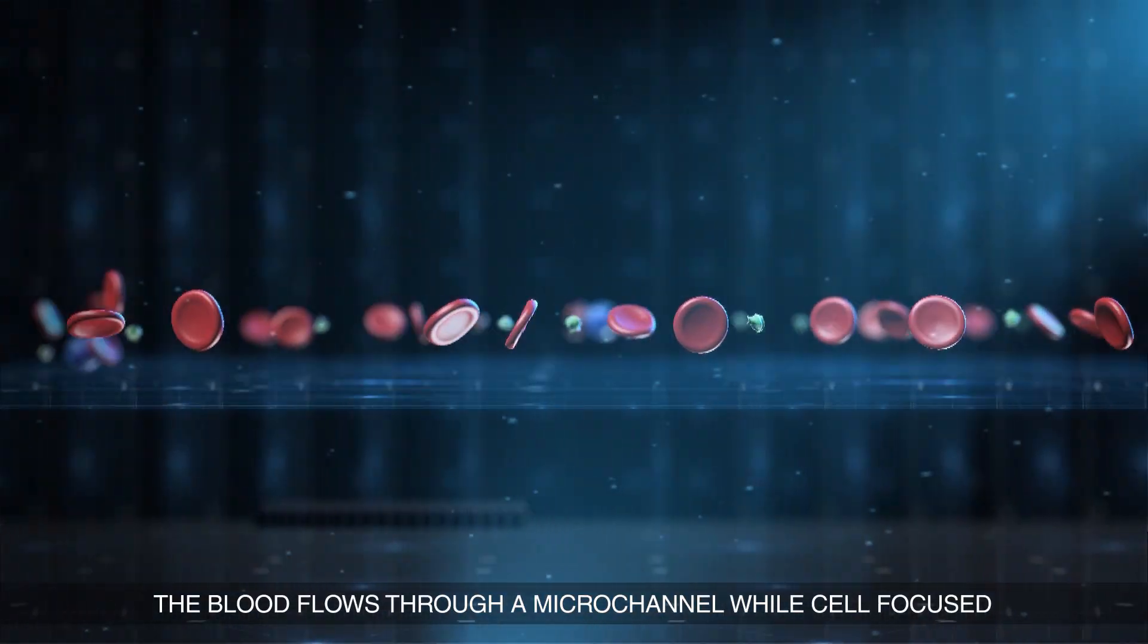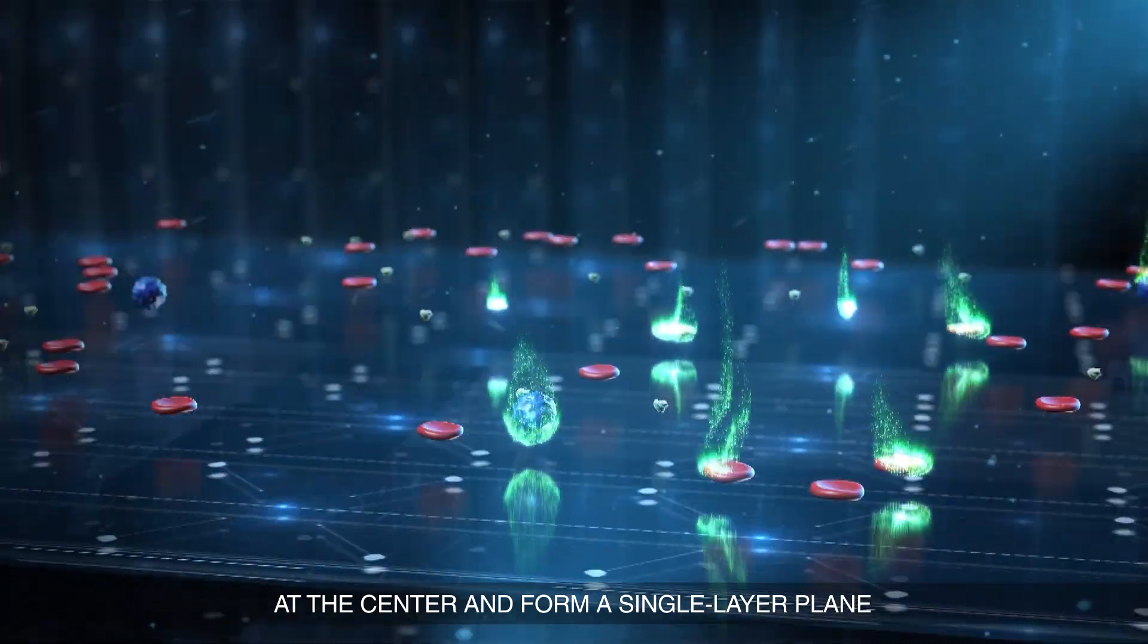The blood flows through a microchannel while cells focus at the center and form a single layer plane.